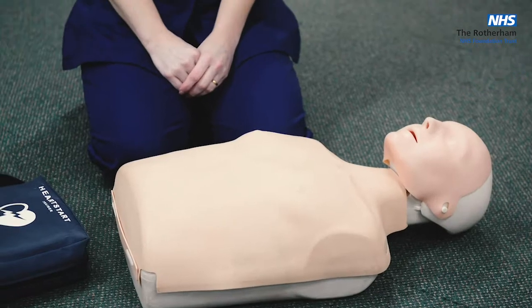The next part of resuscitation is using an AED on your patient. If you are at a base, there should be plenty of people around to help you, and as we said previously, there will be an AED available — it should be behind reception.